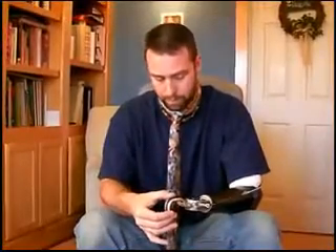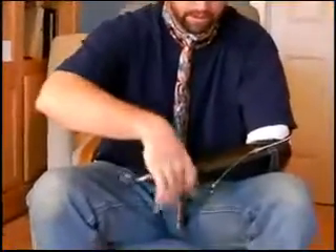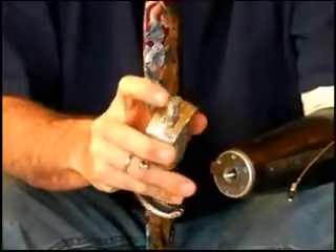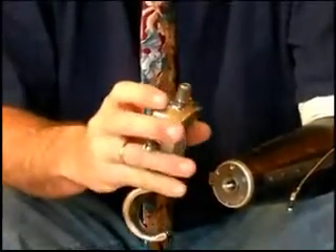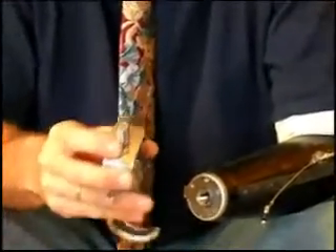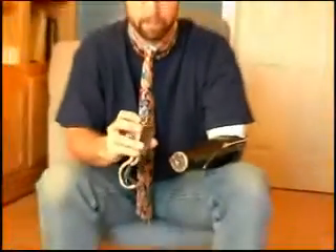As we talked about, these things being milled out of aluminum or titanium — I feel that this product could last indefinitely, independent of the internal parts which could be replaced at a much lower cost than replacing the whole item, and then the fingers can be replaced. The part I was talking about before was the wrist threads that I just put on the wiki page. The guys at Hosmer are developing this product being milled out of aluminum, but they're still going to rivet these stainless steel threads on the bottom. I feel it would be really great if we could make this out of titanium and include the threaded portion at the bottom — one less stress point to break. And if this were milled and made as one piece, there would probably never be a failure.